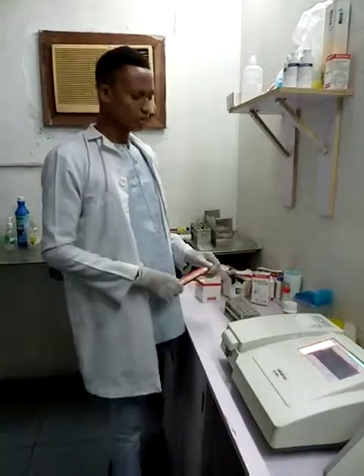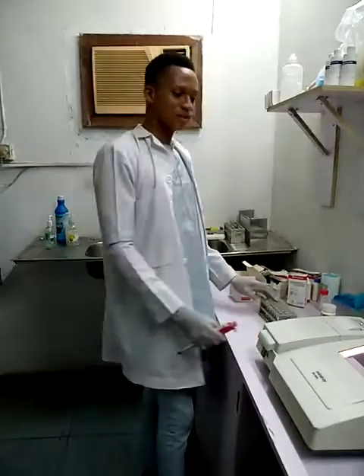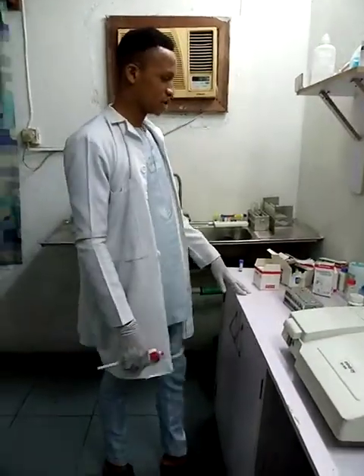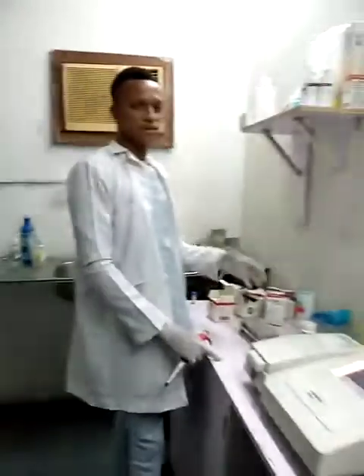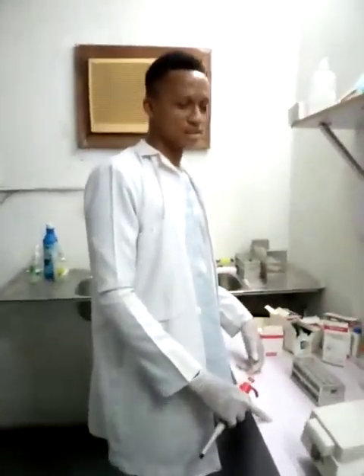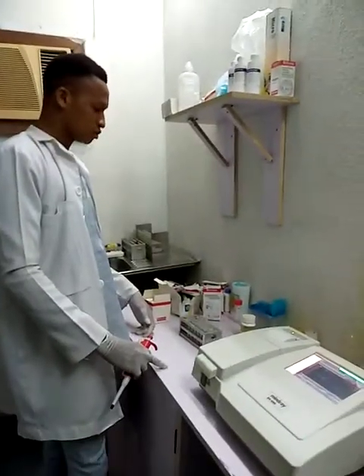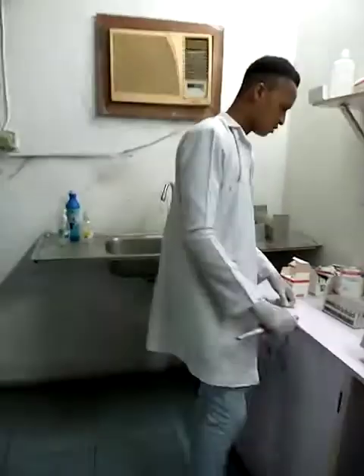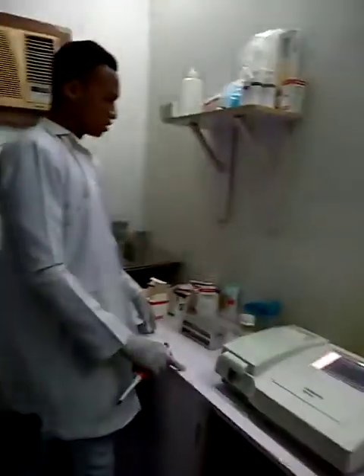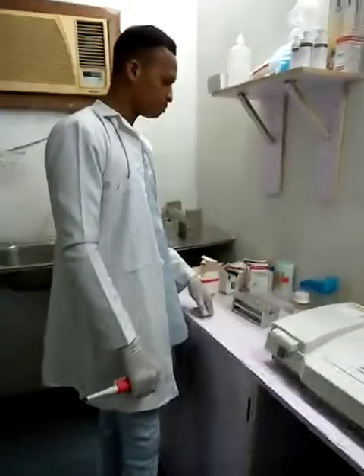Alright, today I'll be doing my second video on chemistry procedures, and today we'll be looking at the procedure for lipid profile. We'll look at some of the parameters and some of the analytes that we check in the lipid profile. Today I'll be running the total cholesterol, triglyceride, HDL, and LDL, and the calculation to get our VLDL.